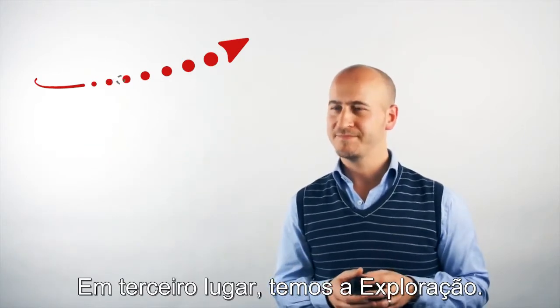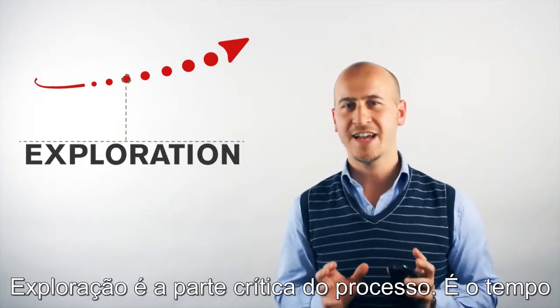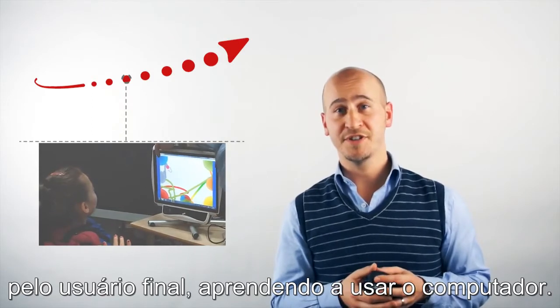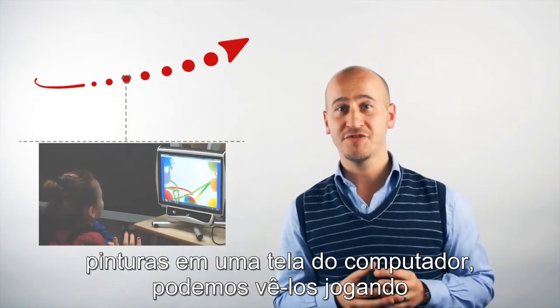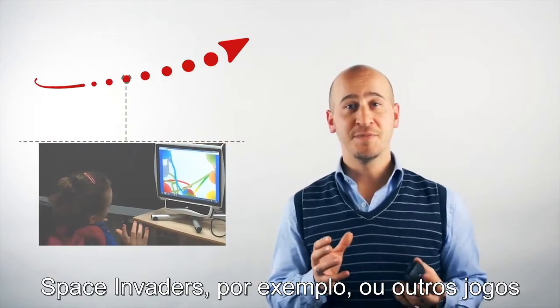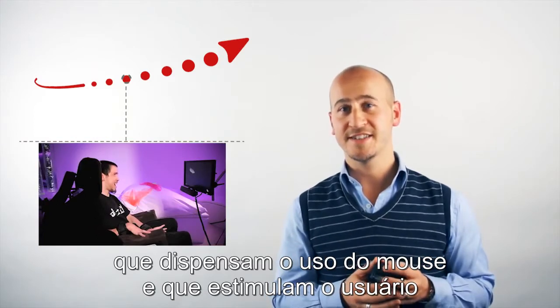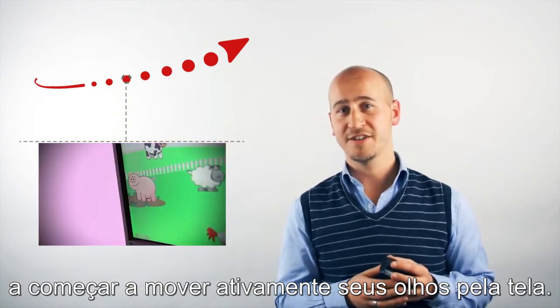Thirdly, we have exploration. Exploration is the critical part — this is time spent alone by the end user learning how to use their computer. At this stage, we might be looking at painting on a screen, playing space invaders, shoot-them-up games, just simply mouse-over exercises that encourage the user to start actively moving their eyes around a screen.